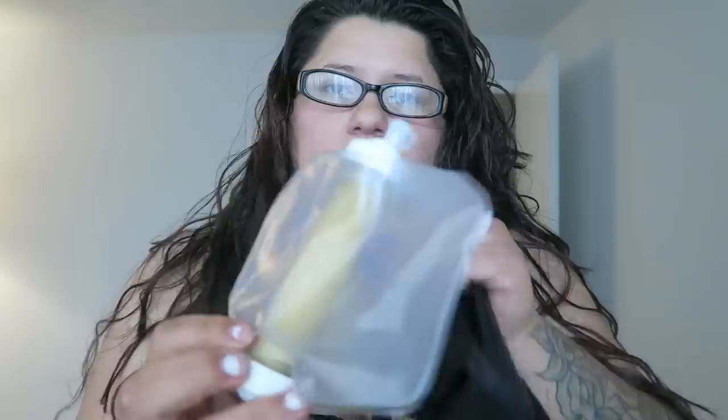Hello everybody, welcome back to my journey. This video is going to be about the pain medicine that is still attached to me — I have two of them. They come up through here and they are actually empty, so it's time for me to take them out. That's what they said — I can just take them out. It's called the On-Q pain relief system. It was actually a ball, it was inflated, but like I said it's empty.